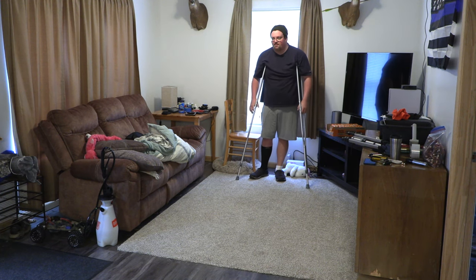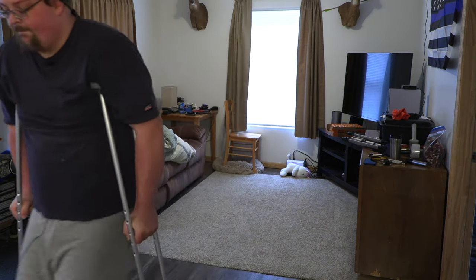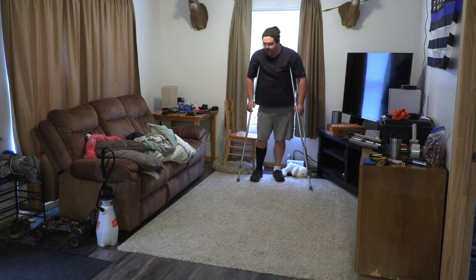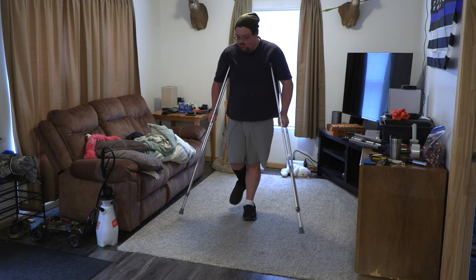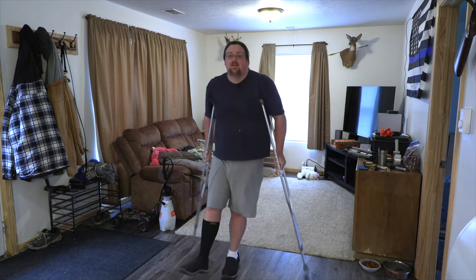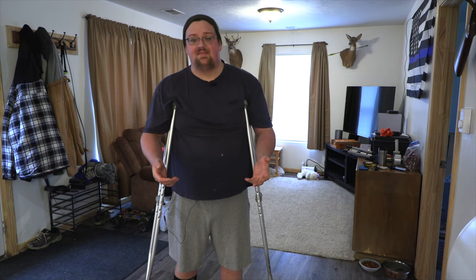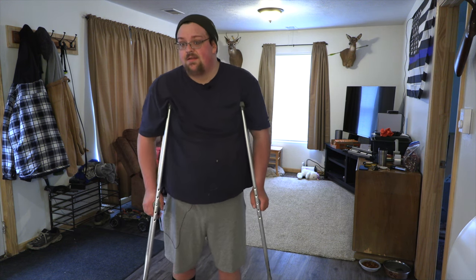Adding a little speed: you can pretty much just throw yourself forward if you've gotten to this part. If you're feeling pretty comfortable, you can throw some speed off your takeoff — throw yourself forward, weight onto the crutches, throw yourself forward. And that is how I learned to walk on crutches. I started out with simple movements that gave me confidence in the crutches and got me familiar with feeling the weight transfer, and then I learned to swing with my core. It's not hard.